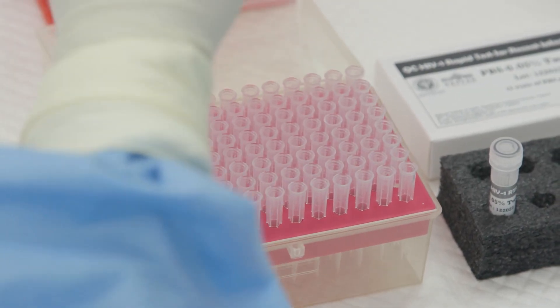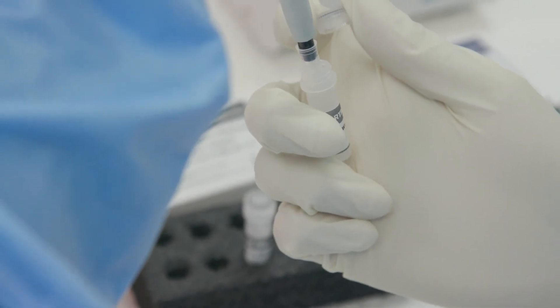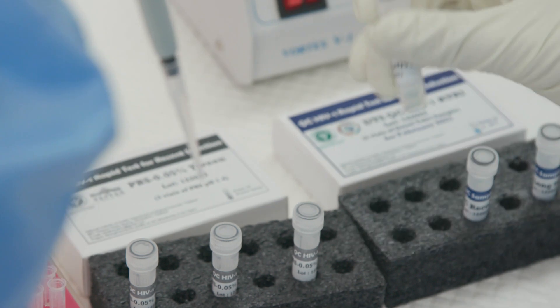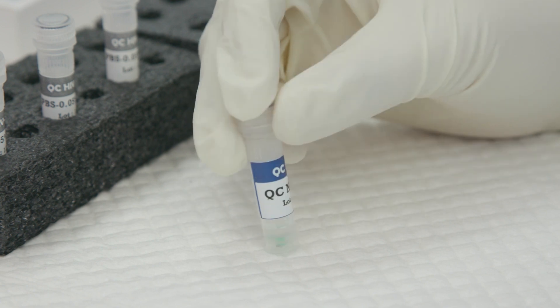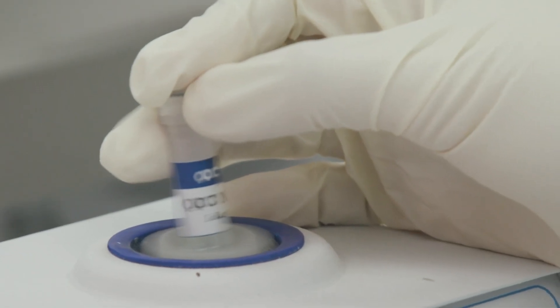Before starting the testing process, dissolve the dry quality control samples. Step 1: Put 200 microliters of DTS-PBS 0.05% Tween solution into each of the test tubes containing dry quality control samples. Step 2: Lightly tap the tubes on the lab bench 3–5 times. Step 3: Mix each sample well with the vortex mixer for 10 seconds.